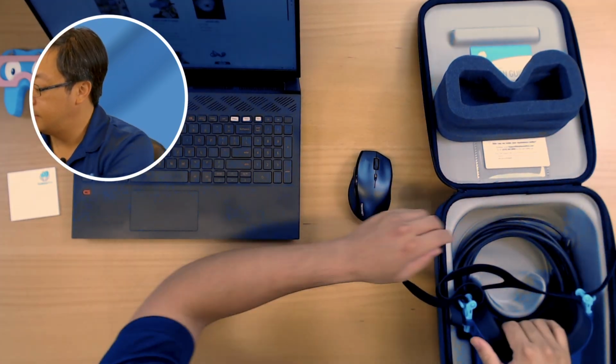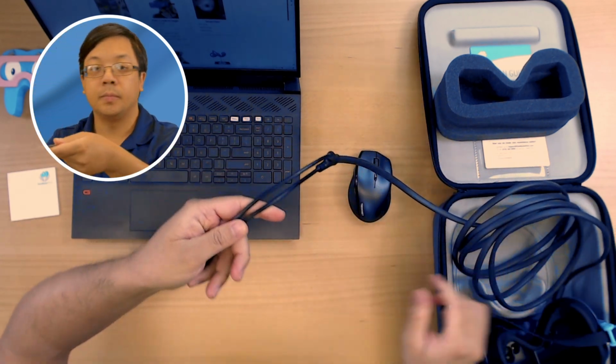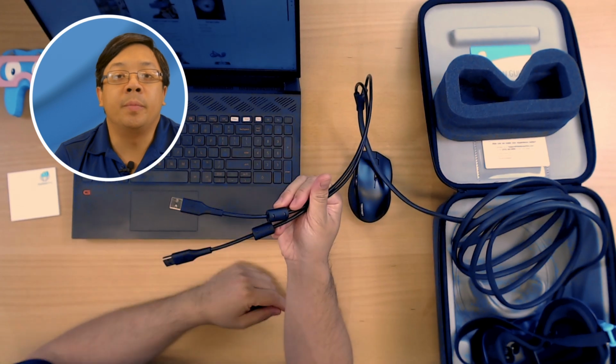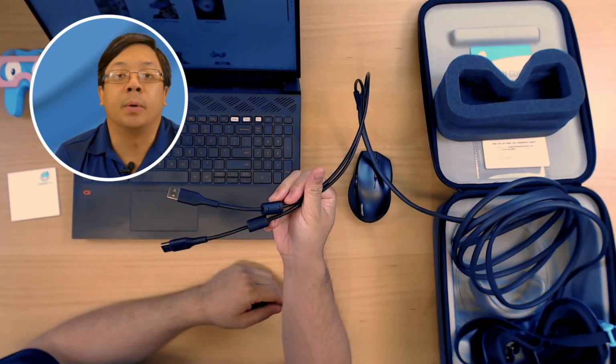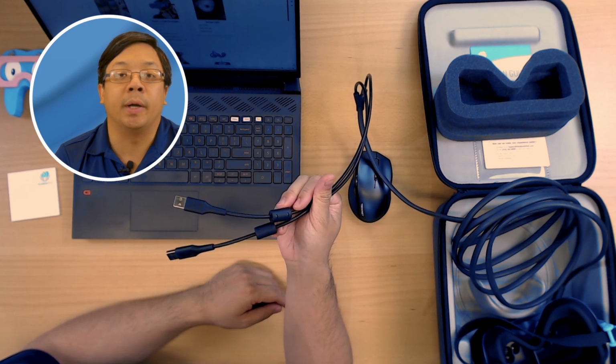Our first step for setting up the goggles will be to plug them into your computer. Our goggles have two USB plugs. If your computer does not have enough ports, or only has the newer USB-C port, you will need a USB adapter or hub. This is one example of a USB hub, but anything similar should work.